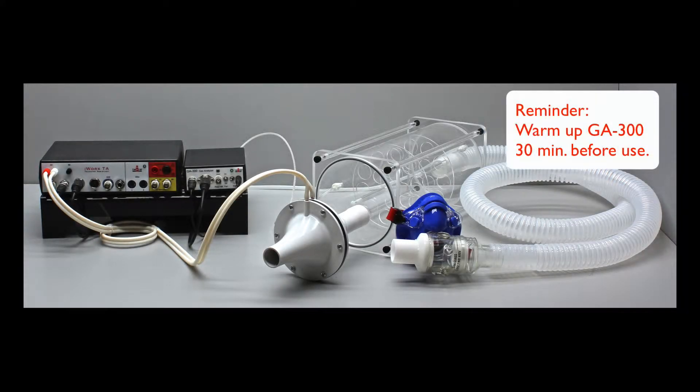As a reminder, always turn on your gas analyzer and warm it up 30 minutes before use.